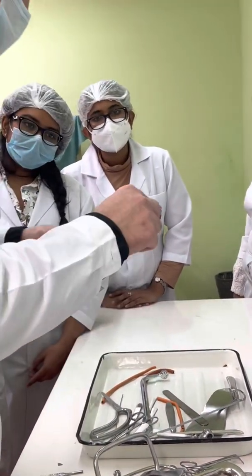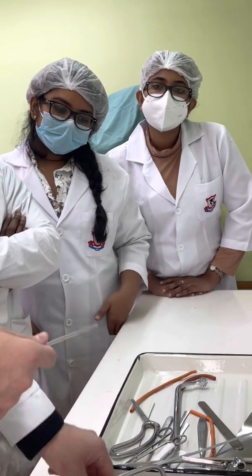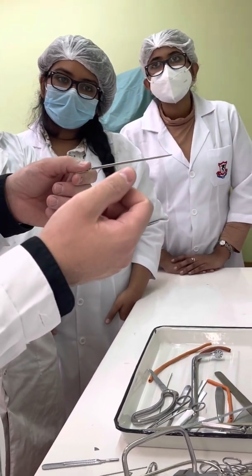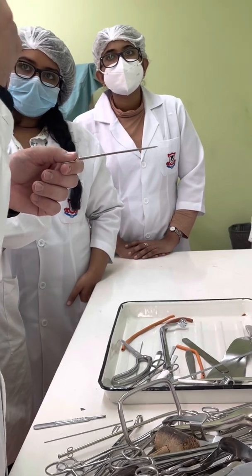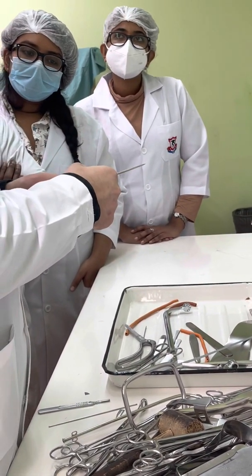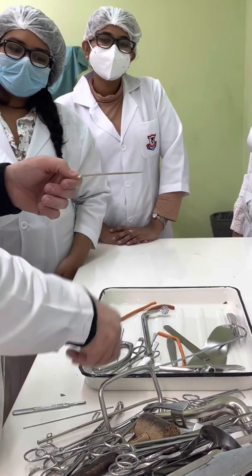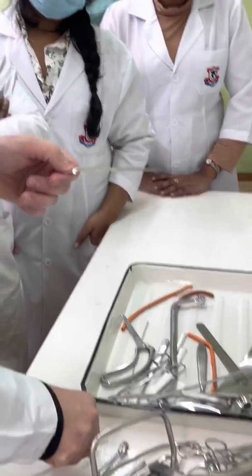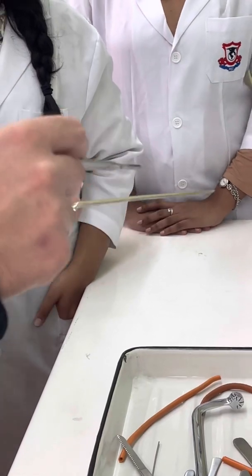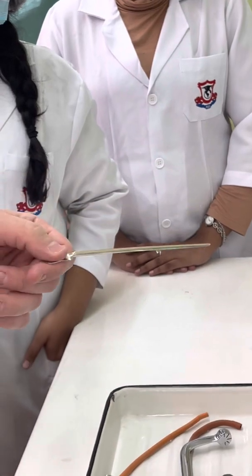Two probes: leaf probe for touching something small, checking wound canals and fistulas; and groove probe. We use the scalpel with the sharp blade sliding along the groove, putting it under the flaps of the peritoneum or under fascias to protect underlying structures.